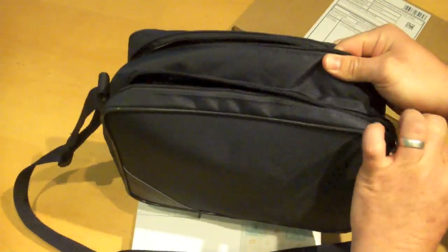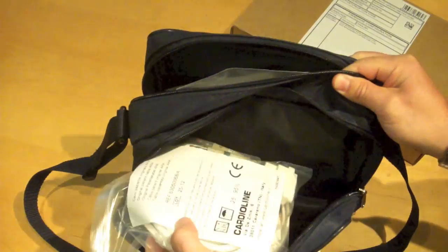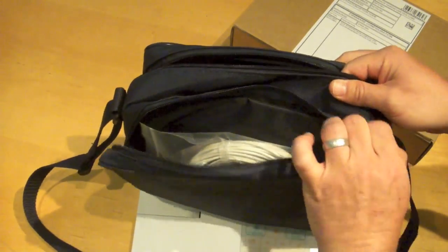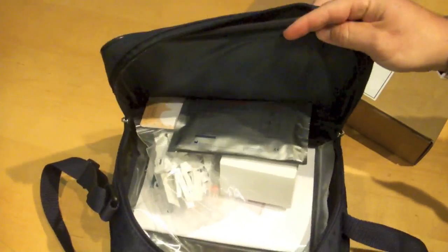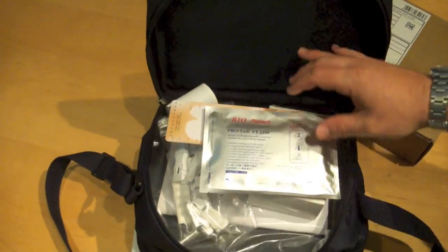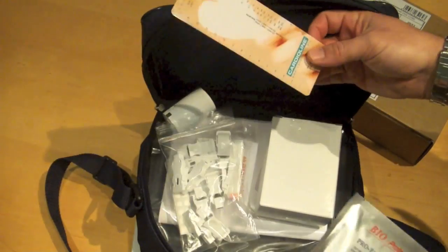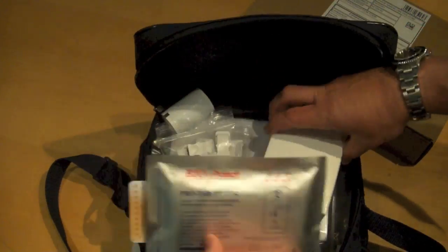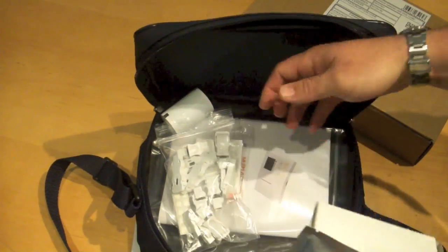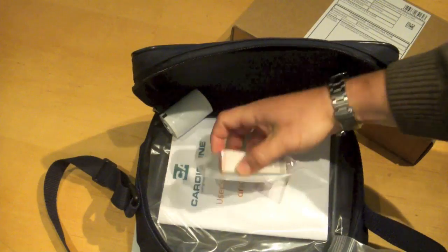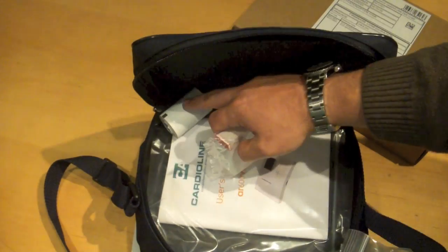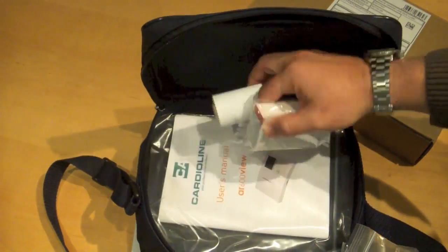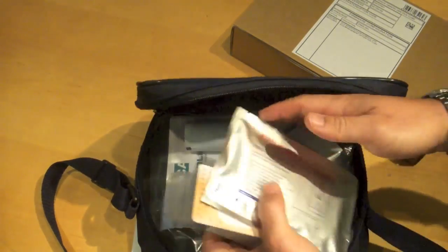In the front pouch will be the patient cable, and in the larger pouch will be your standard accessories. The unit does ship with a measurement ruler, 500 electrodes, power supply, universal clips (10 of those), sample paper both Z-fold and a roll depending on your preference, and a full user manual.